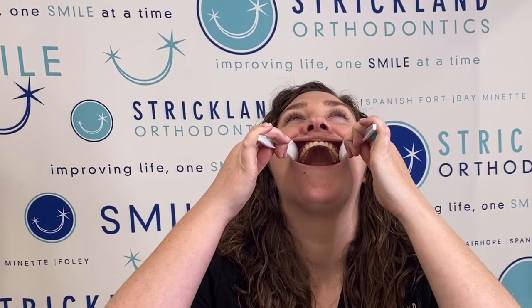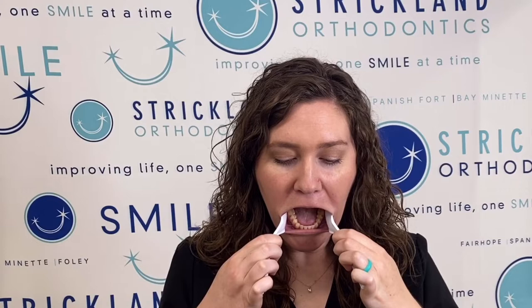The next picture is going to be of the tops of your upper teeth, so you'll kind of lean back and take that picture, and then go ahead and lean down and take the tops of the lower teeth. You can use the spoons to slide up and down to make sure that you're able to see the surface as well.